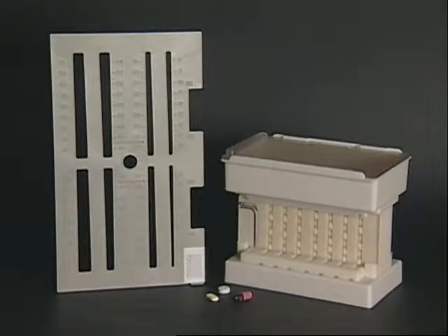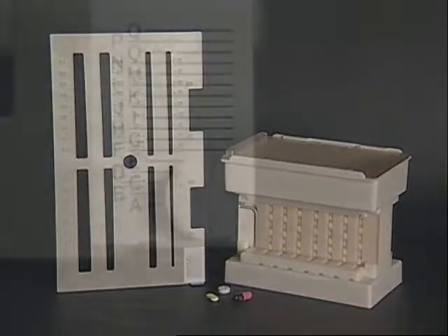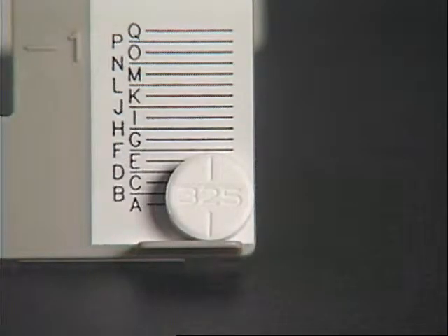Let me show you how to measure your caplets, elliptical tablets, capsules, and tablets if they're not currently located in our database. The first measurement we need for each tablet, capsule, and caplet is using the chart on the lower right-hand side of the grid. The particular tablet you're looking at here measures an F.